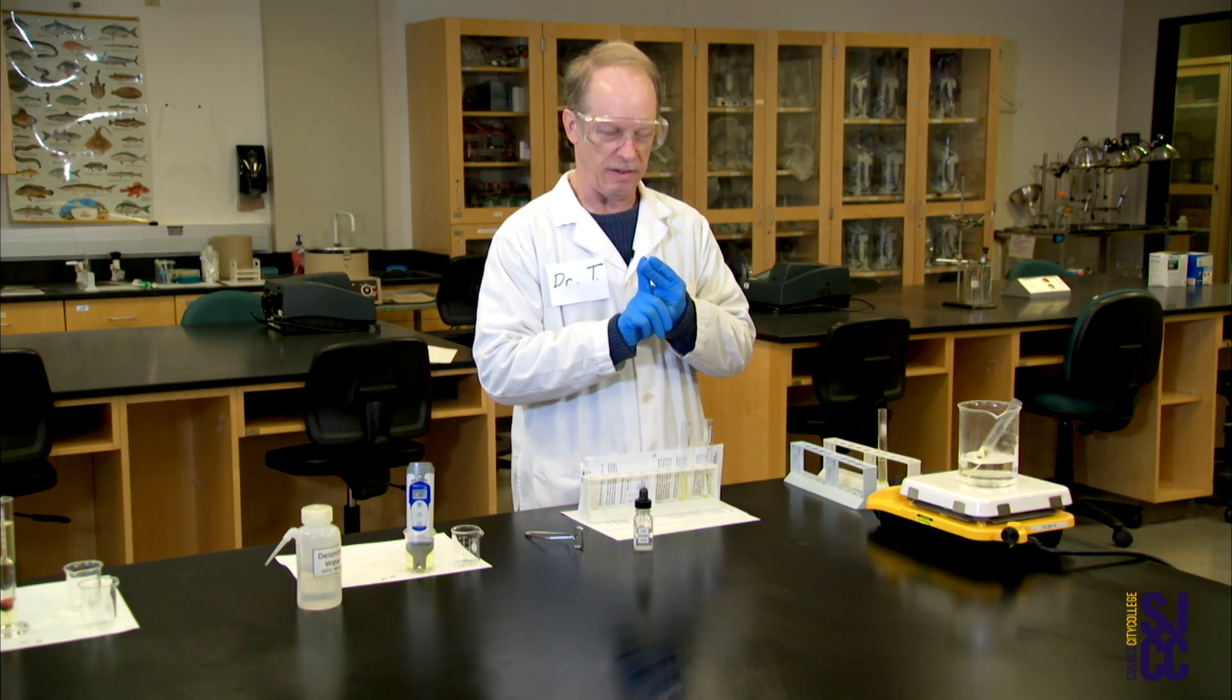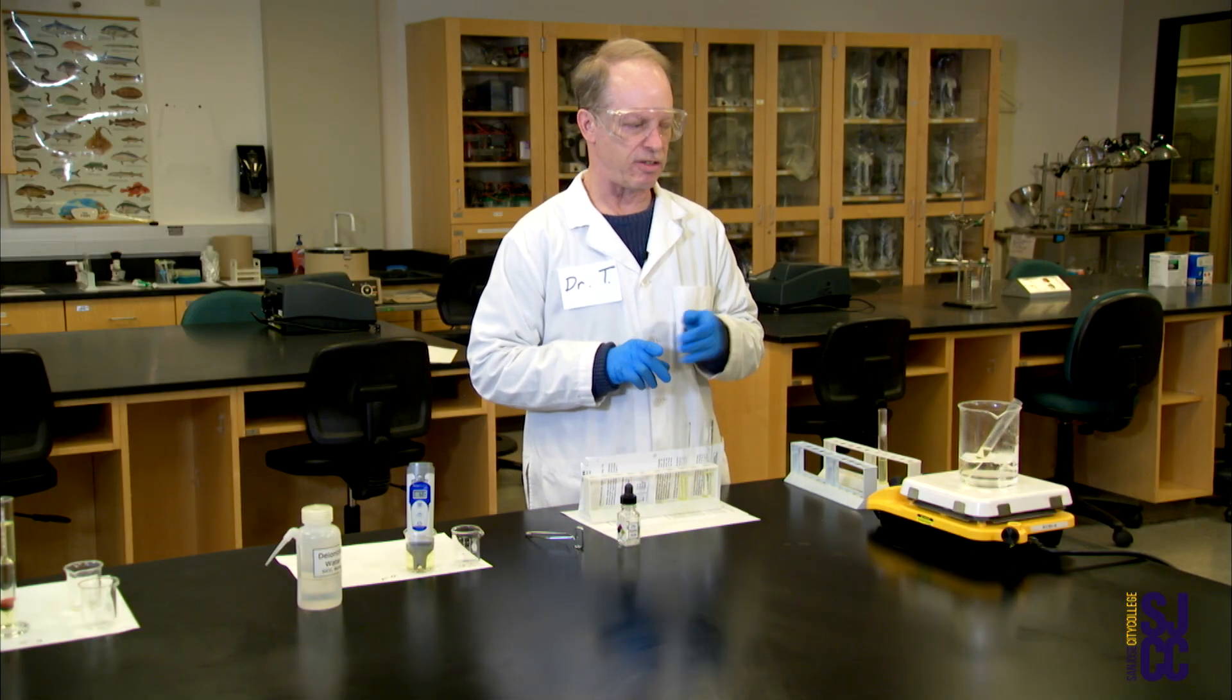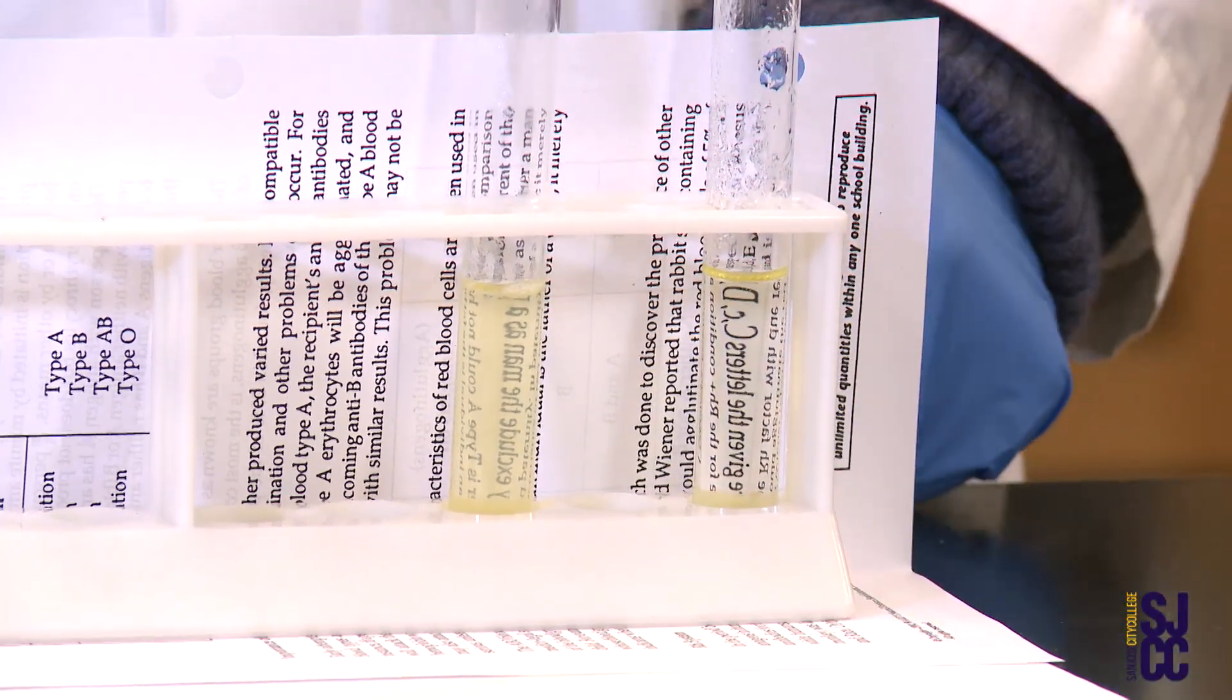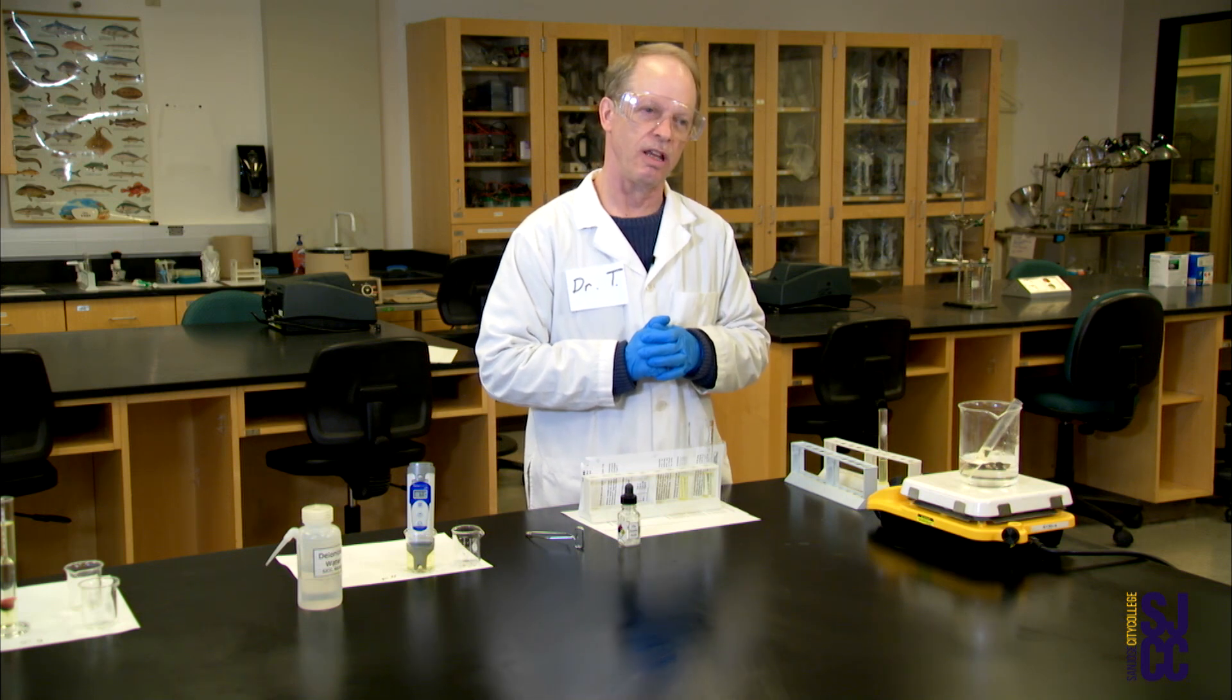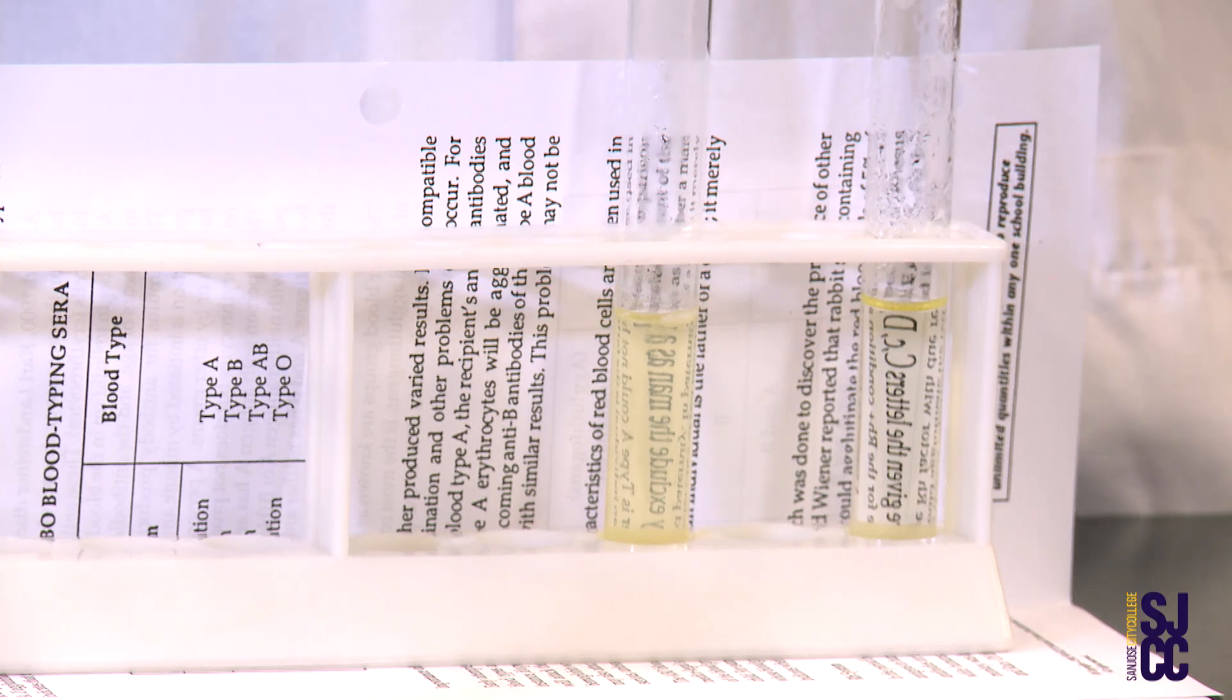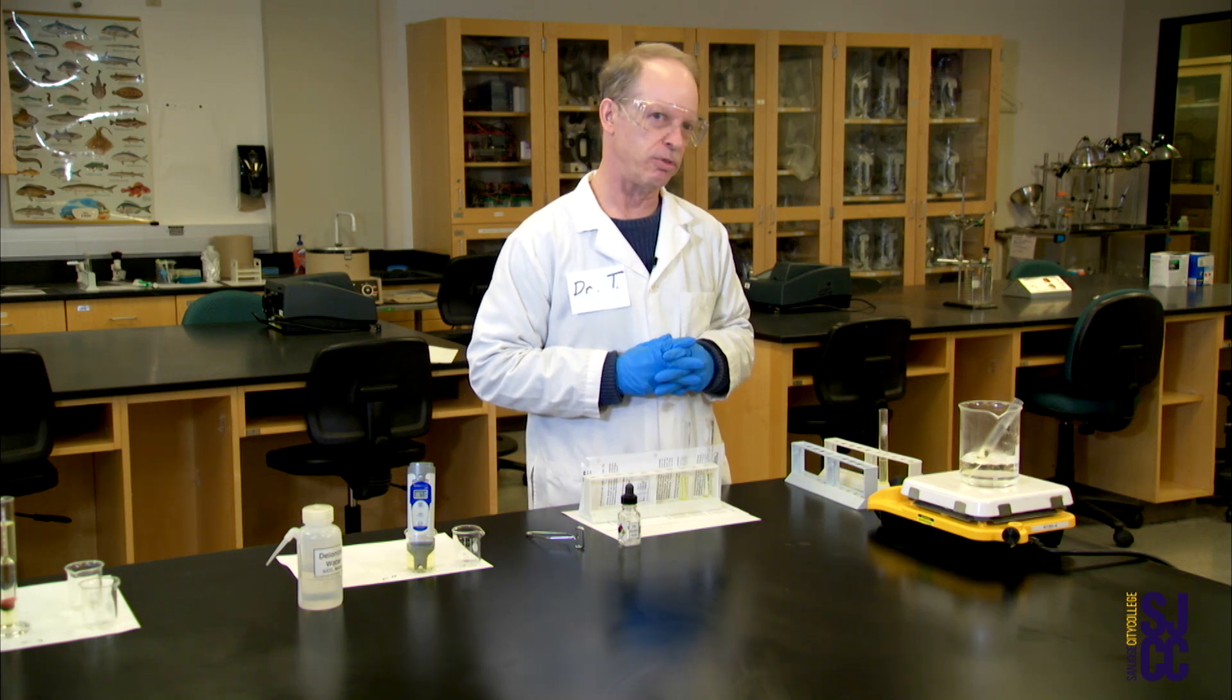But if it is, good, because that's what it's supposed to do. We're testing for proteins. You know how sensitive proteins are - their tertiary and quaternary structure very sensitive to two things: temperature with the boiling and pH with the acid. The idea is hitting this urine with high temperature and acidic pH. If there's protein in there it denatures the proteins, that changes them, that makes them act more like a precipitate and it makes the solution turn cloudy. That indicates you've got proteinuria, protein in the urine which can be pathological. Ultimately urine comes from blood, it's filtered blood. The plasma proteins in your blood should not be getting into your urine unless you've got a problem, let's say with your kidneys, and the plasma proteins are leaking out. Definitely not a good thing - that's pathological proteinuria.